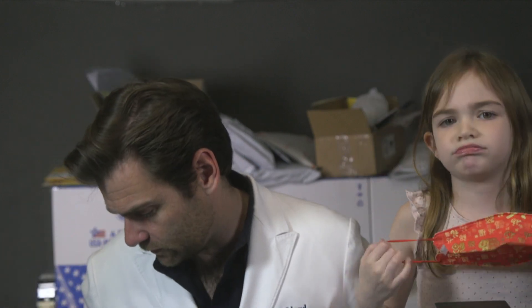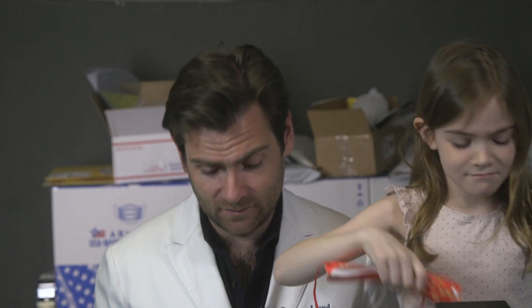Let's see if you can break it. Wow, that's really easy. I don't know, butter cookies — did you find that these broke really easily? All right, test is done. Does any of that stuff matter if it doesn't protect you?